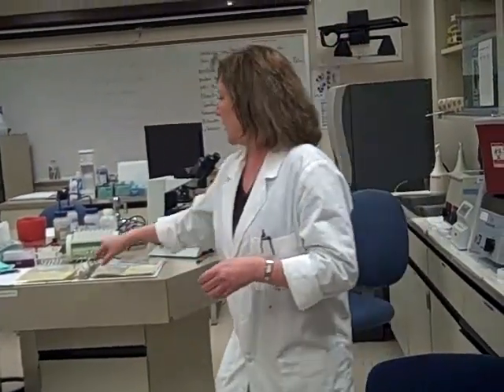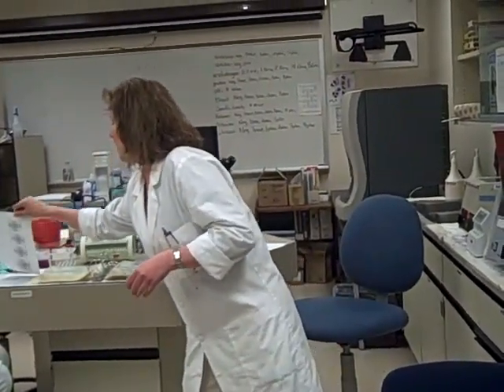We're going to do counts on those, and if you look at your paper, on body fluids, convention tells us that we're going to use whole numbers: no decimals, no scientific notation or exponents. That's versus the whole blood that we did on Tuesday, where we used scientific notation because that's what we're used to.